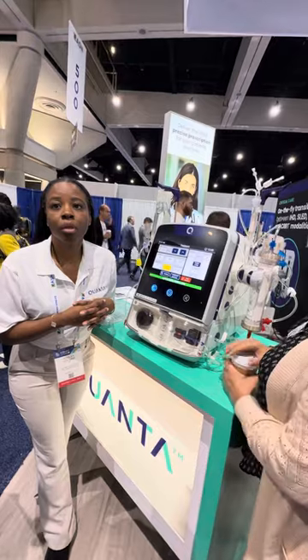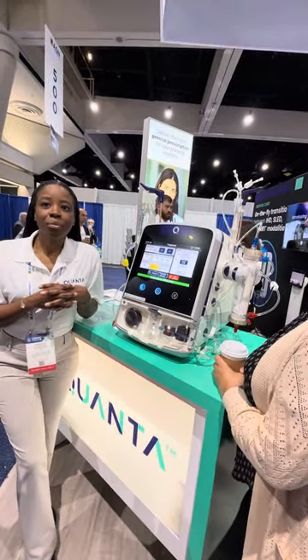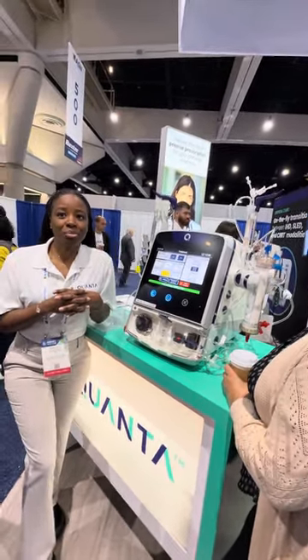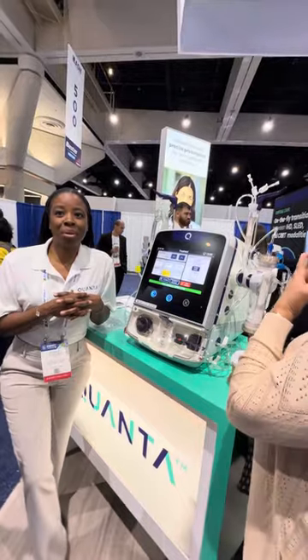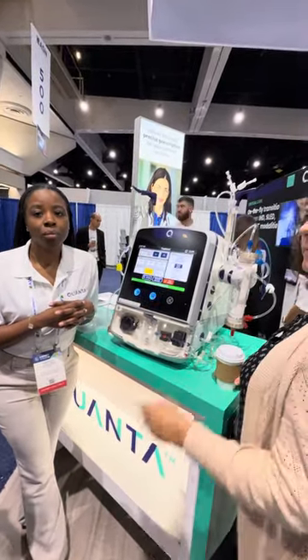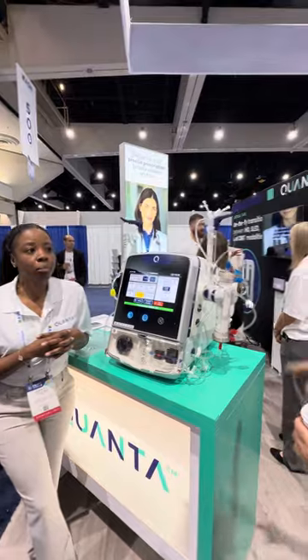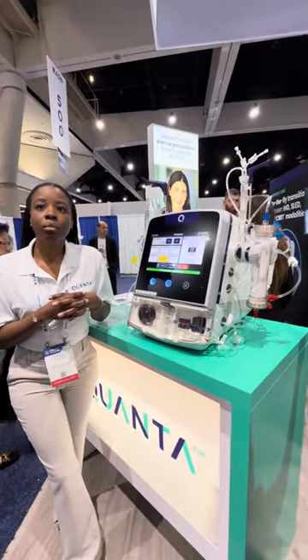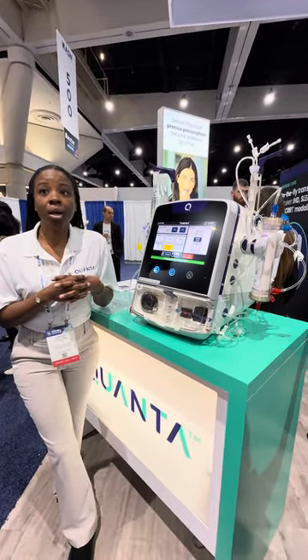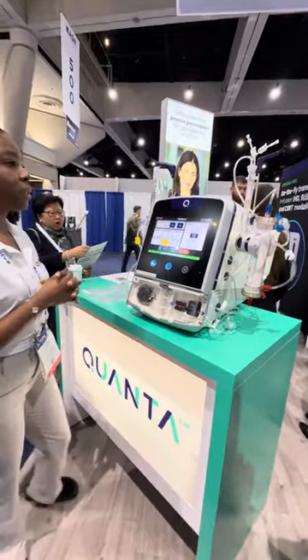This isn't a home machine. Are you guys in the process of trying to get it approved for home? If it's approved for SLED and HD, is it going to be approved for nocturnal since it's continuous? Yeah. Cool, I like to hear that.